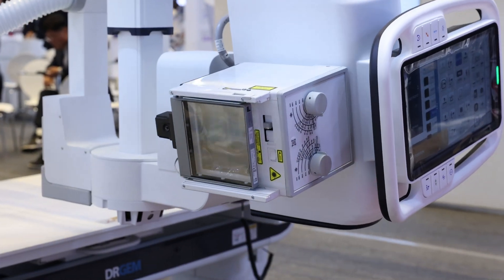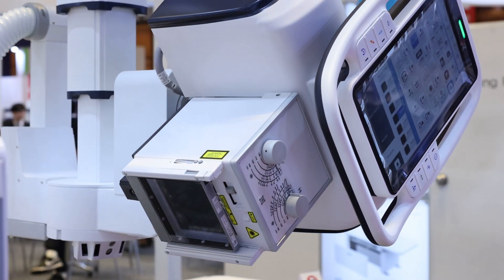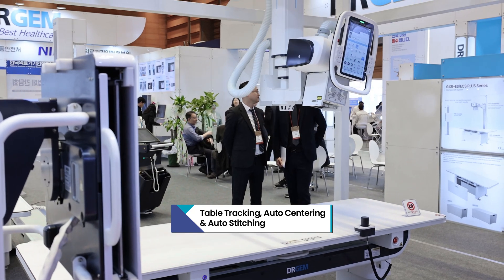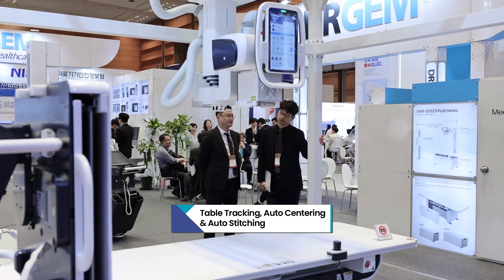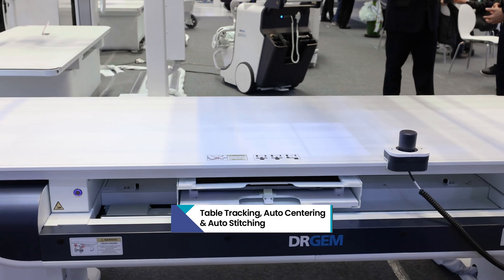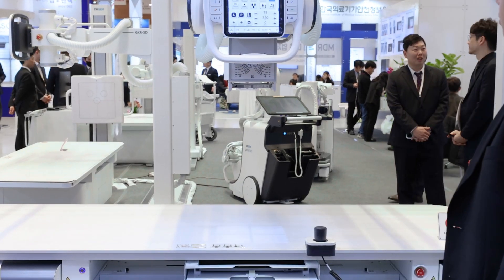The AP system provides motorized synchronized movement, table tracking, auto centering, and automatic stitching function is available.